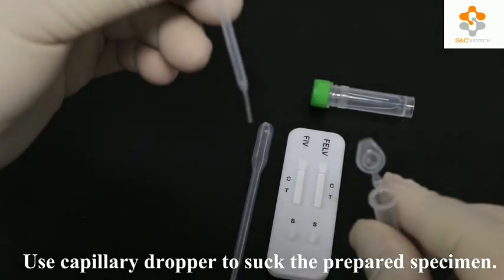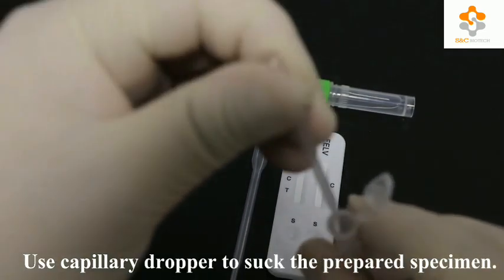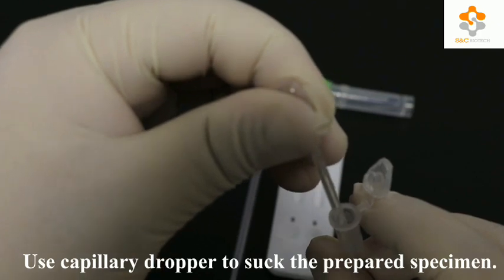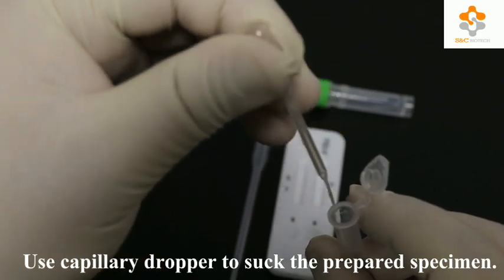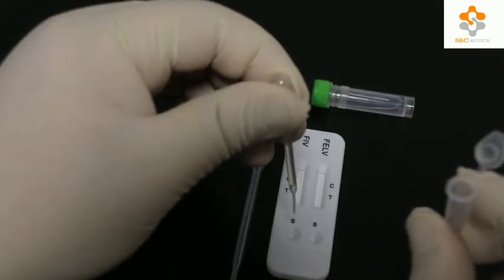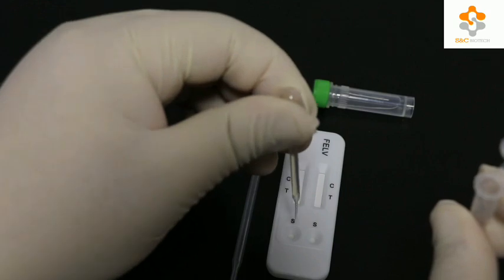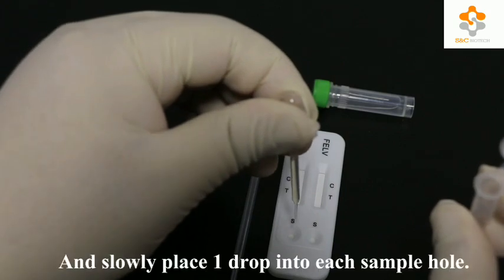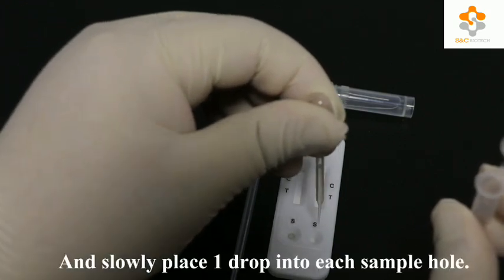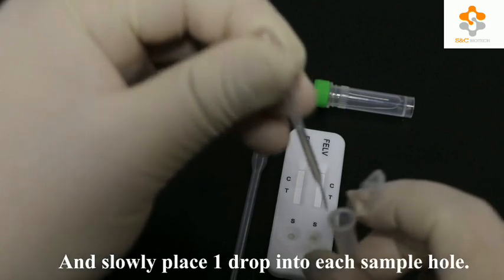Use a capillary dropper to suck the prepared specimen and slowly place one drop into each sample hole.